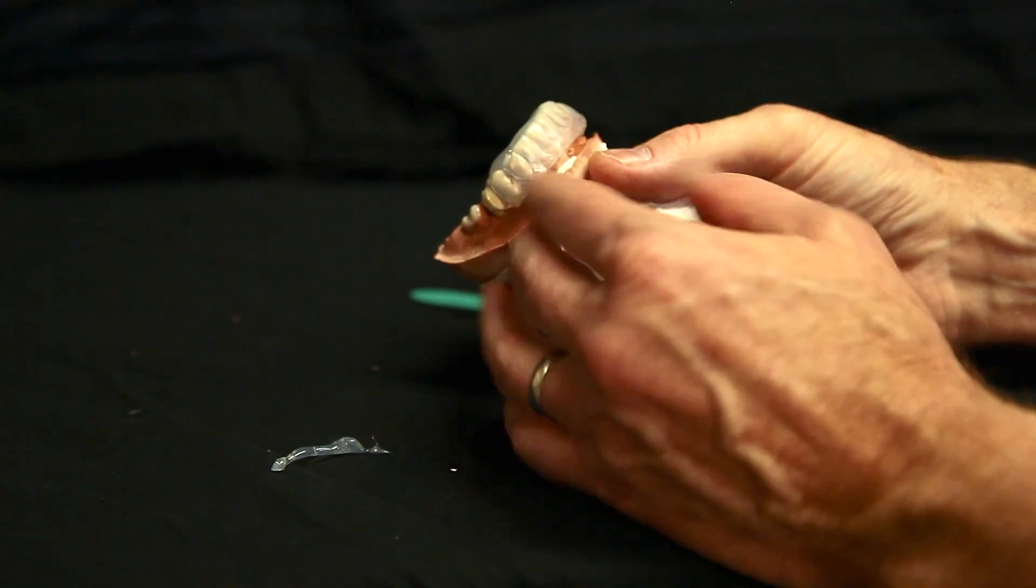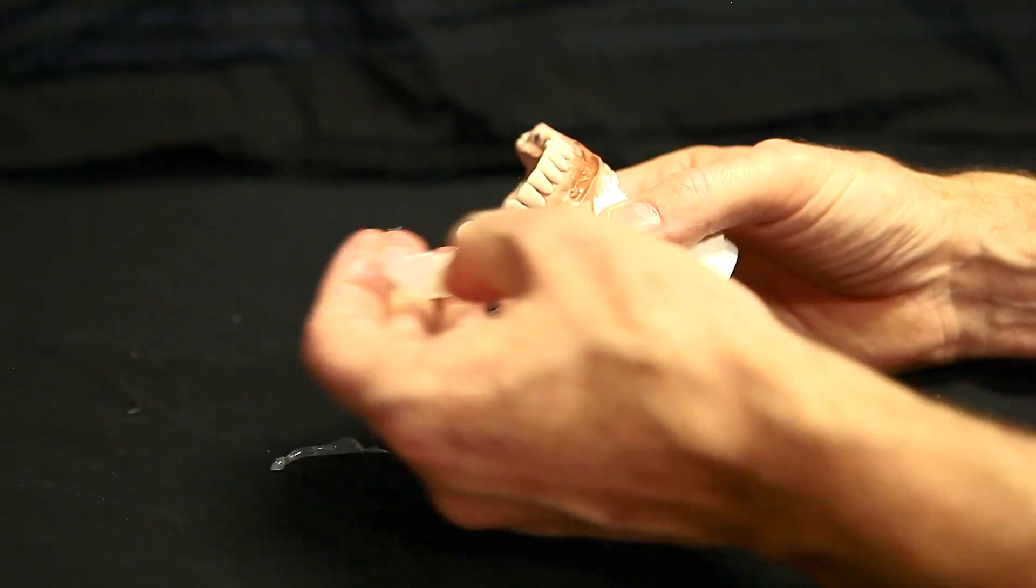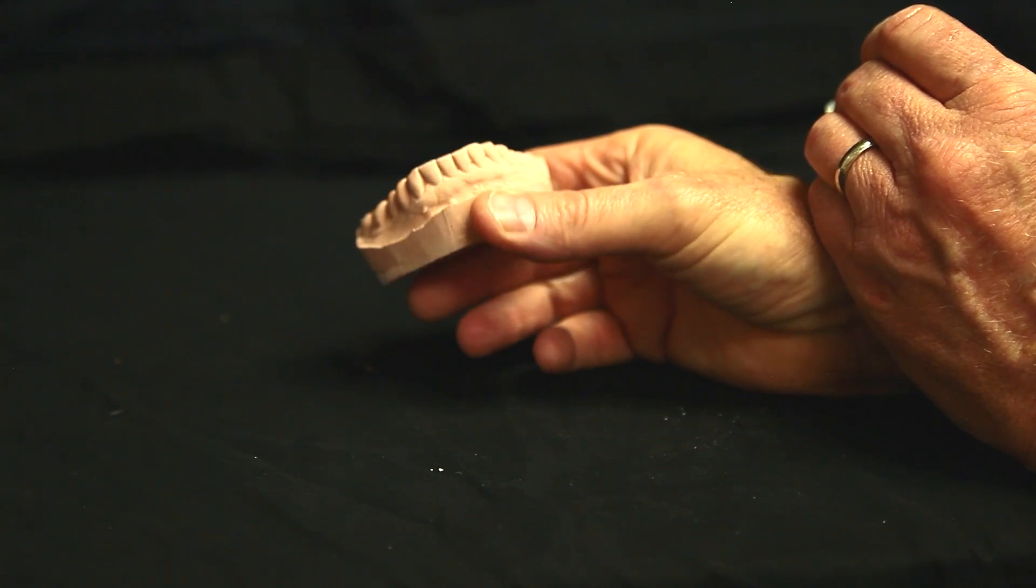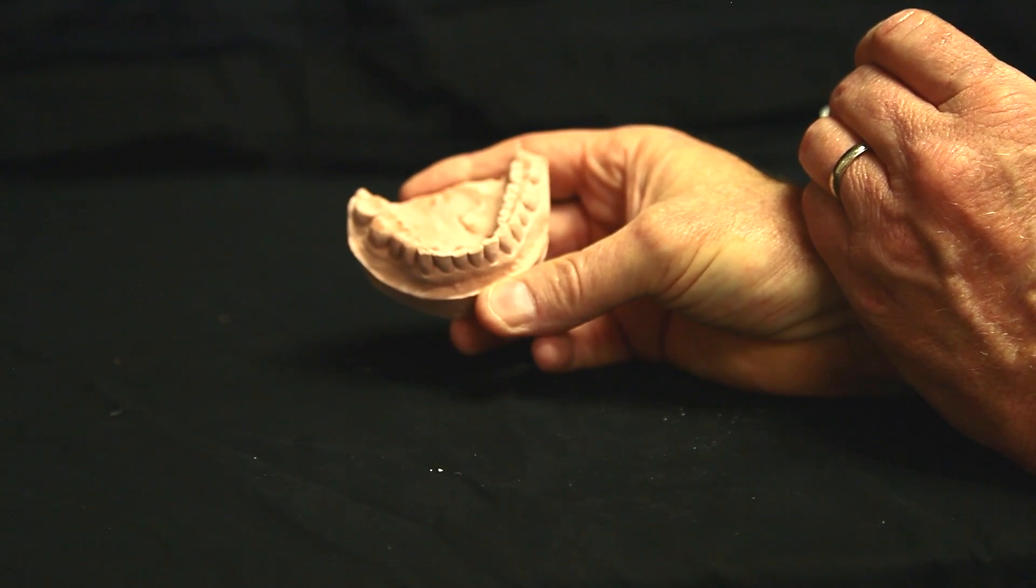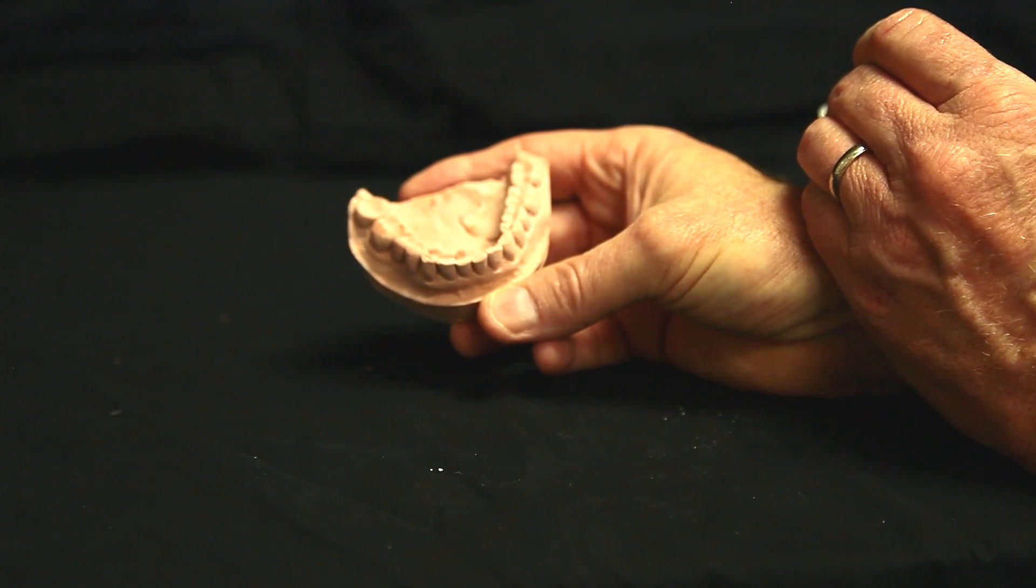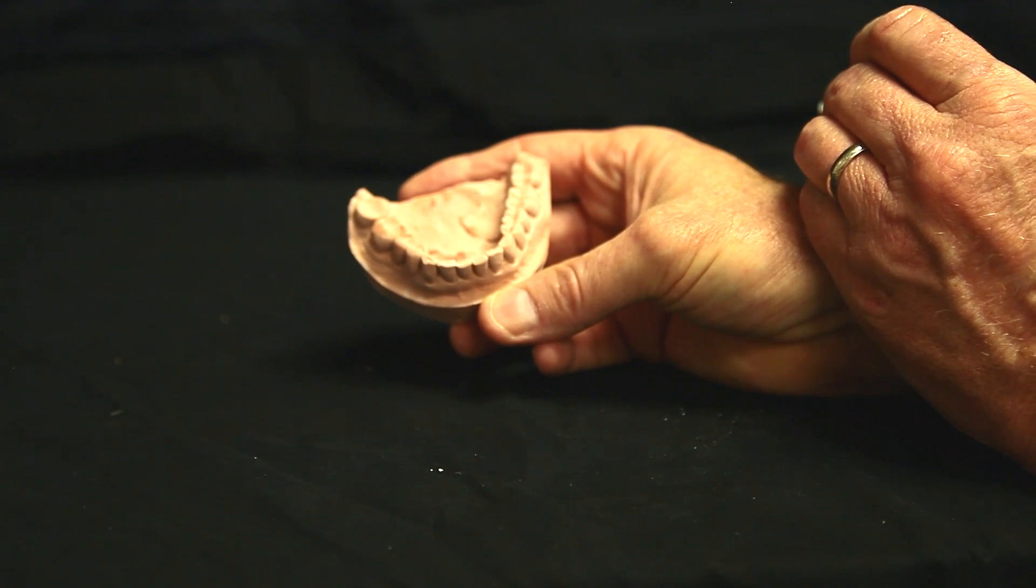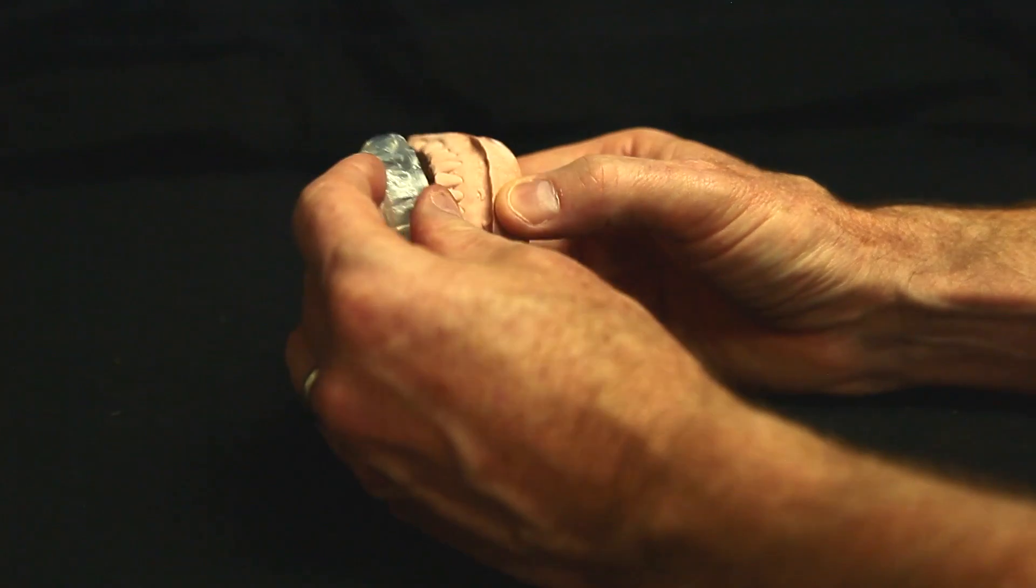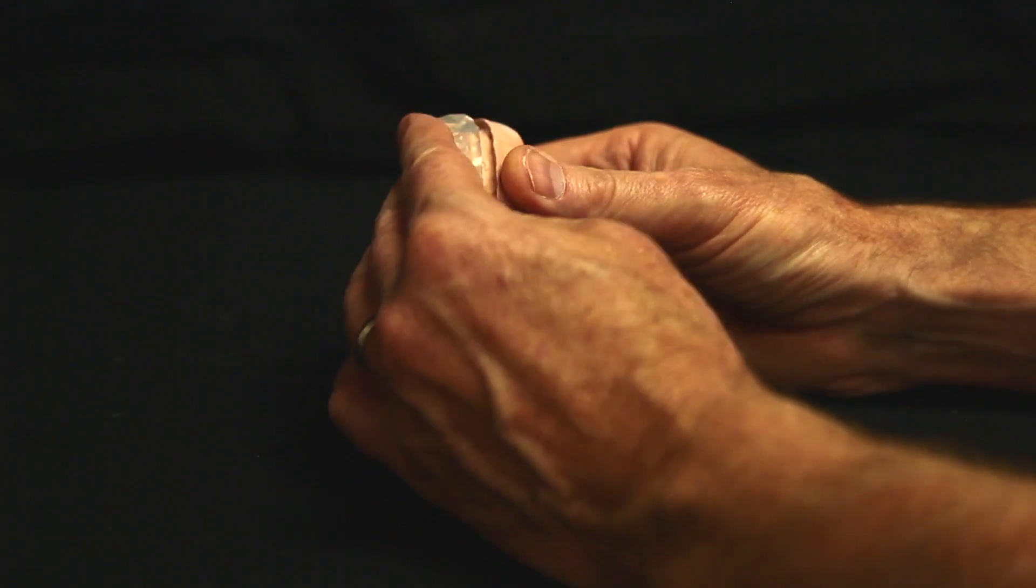Let's try it on the unprepped model. So here we have the unprepped model, unrestored model from our patient. And I go into a lot more detail about matrix design and why in the actual level three tutorial for composite edition. But just in review, here's our model. It fits on.